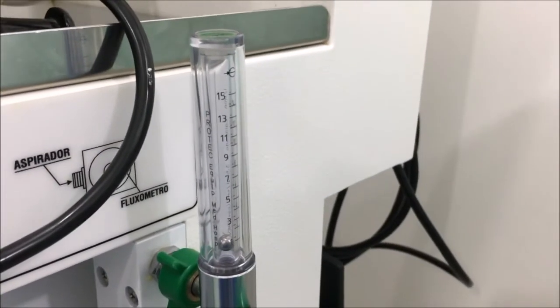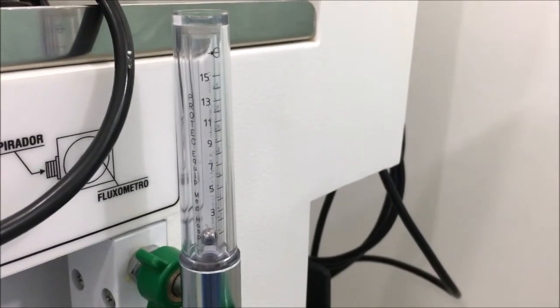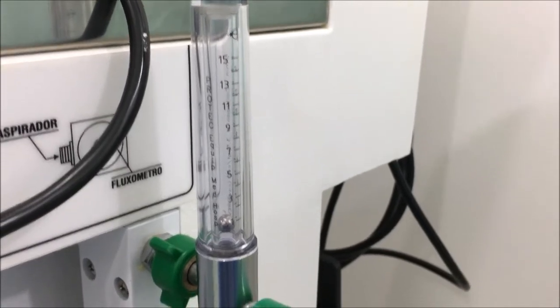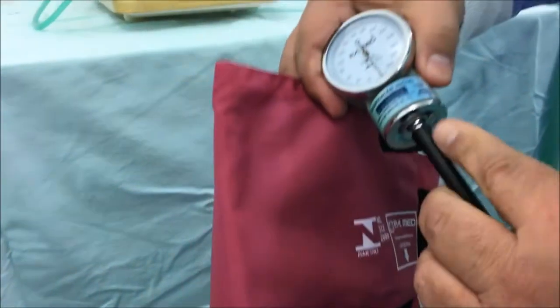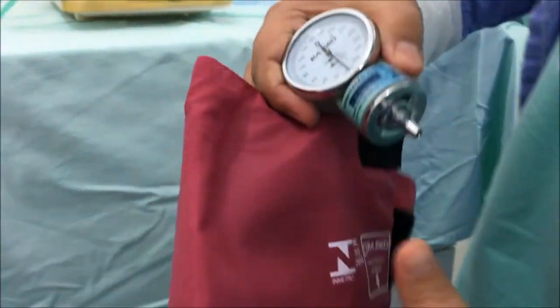Everything is set, but we still don't know how to measure and control the air pressure. The solution was invented by Samuel von Basch in 1881. It is easy besides being very precise. It is called sphygmomanometer.